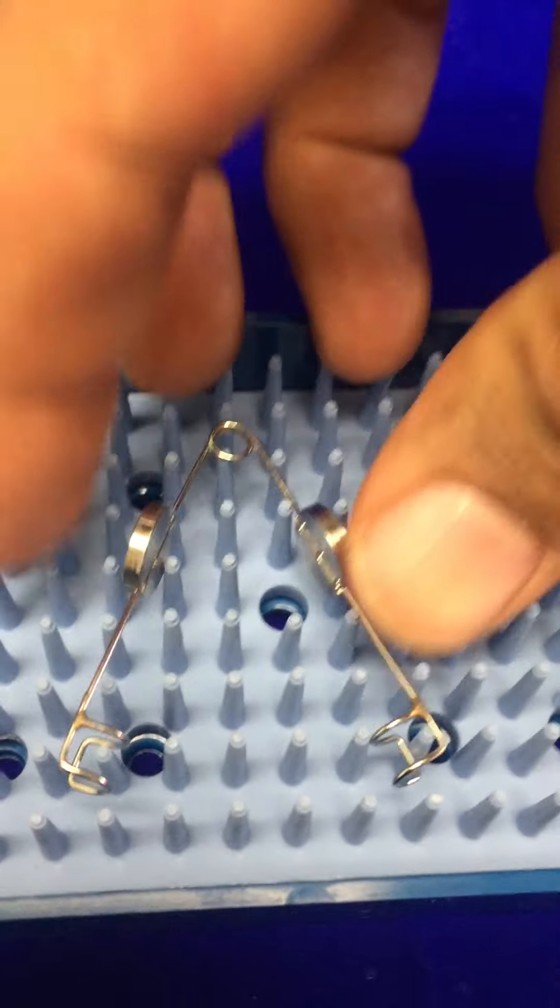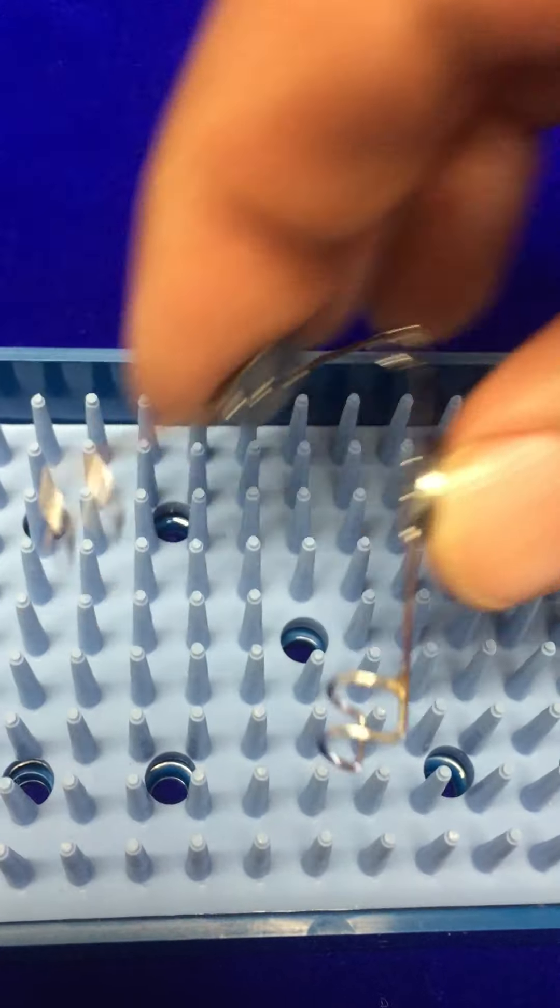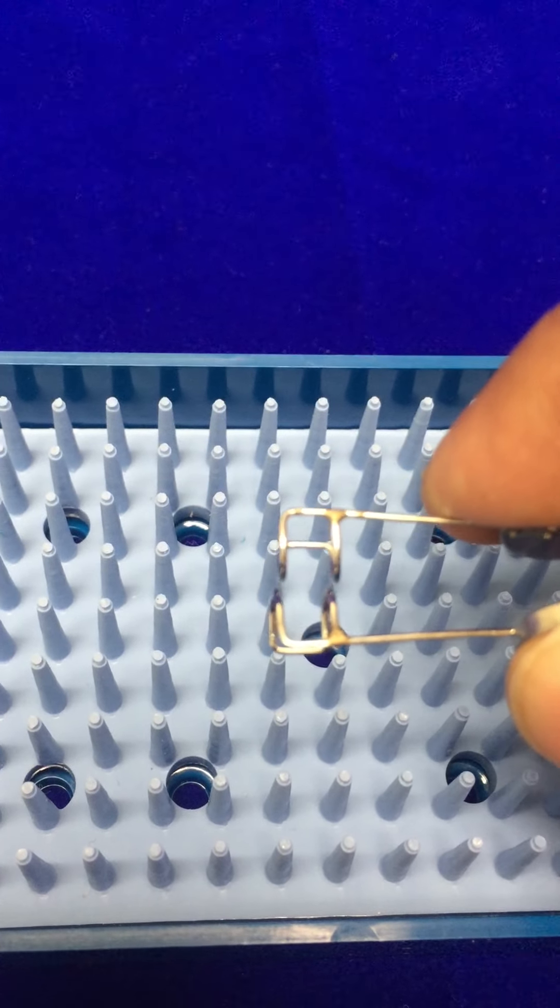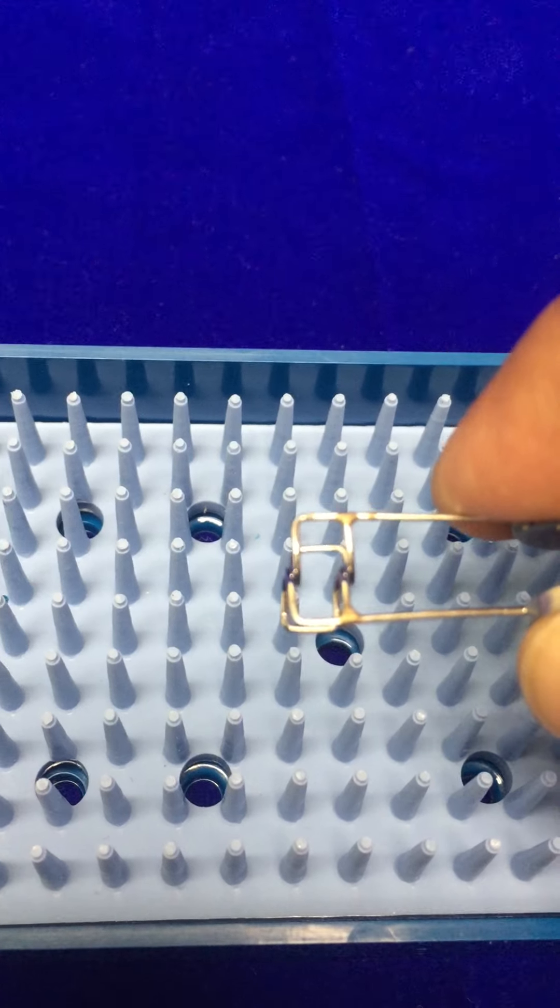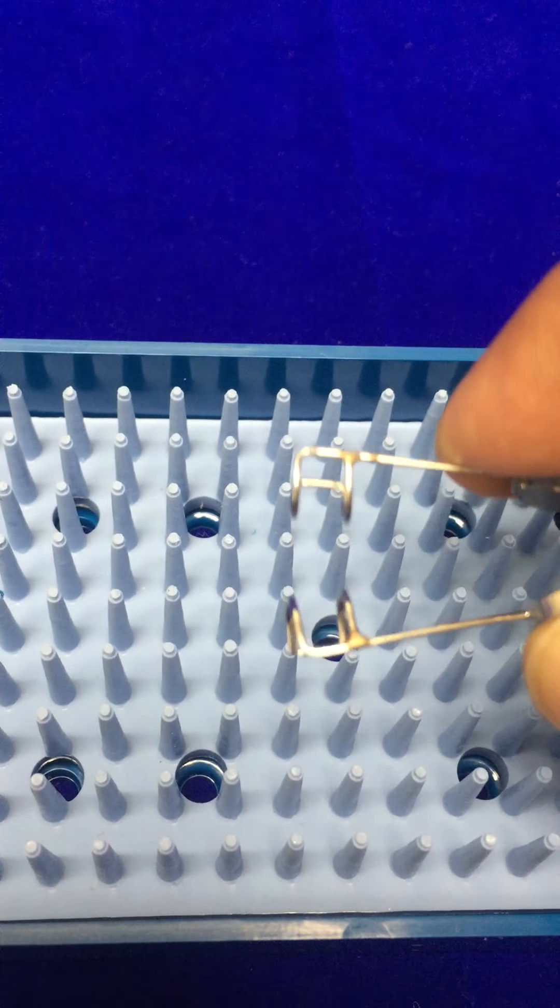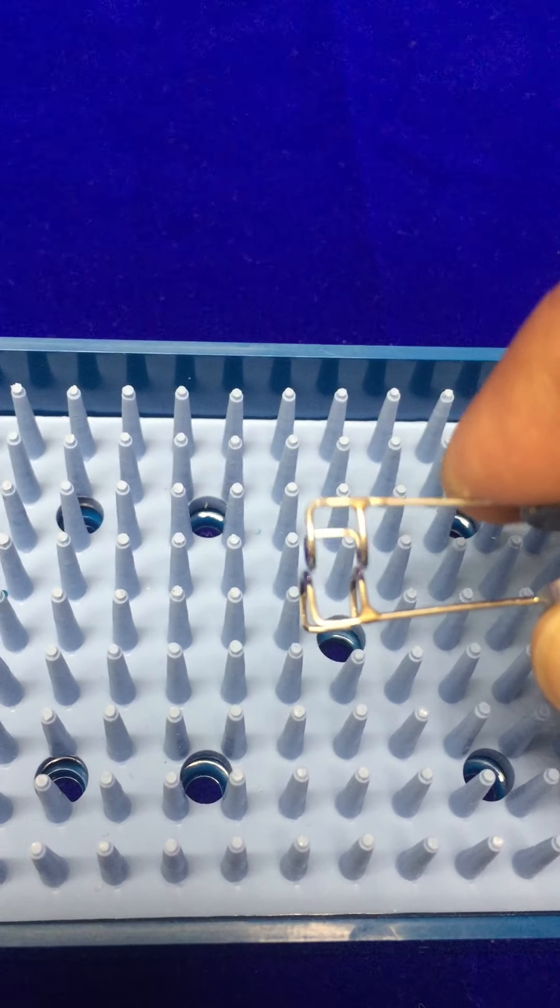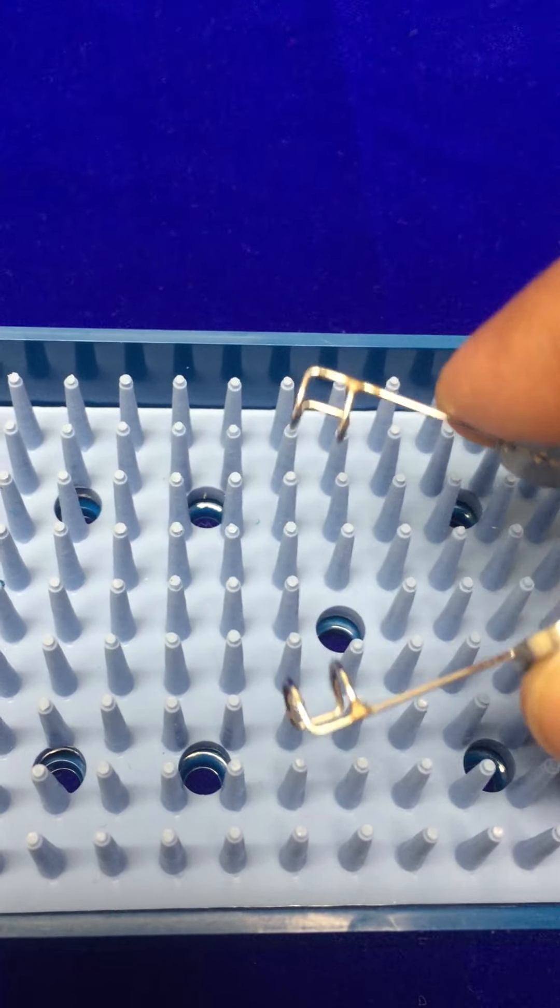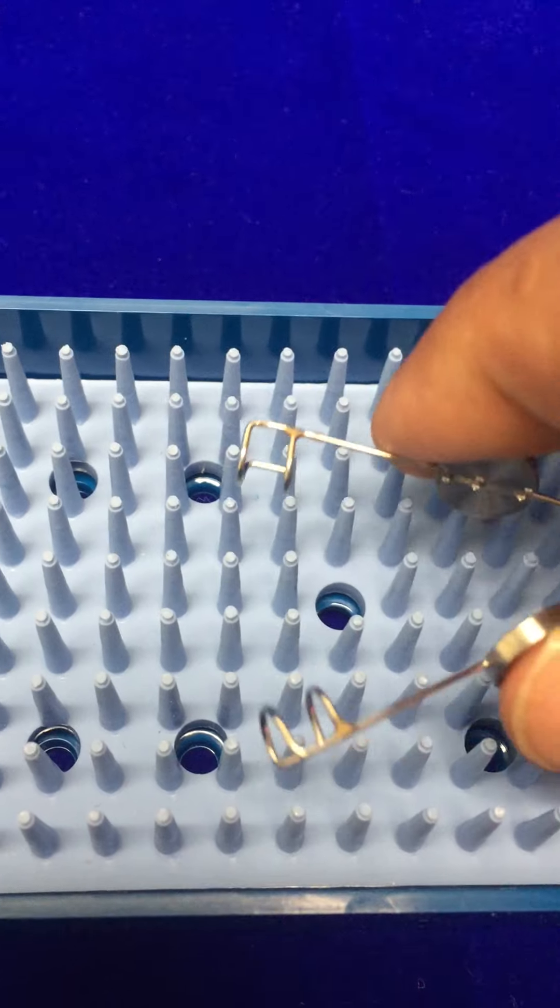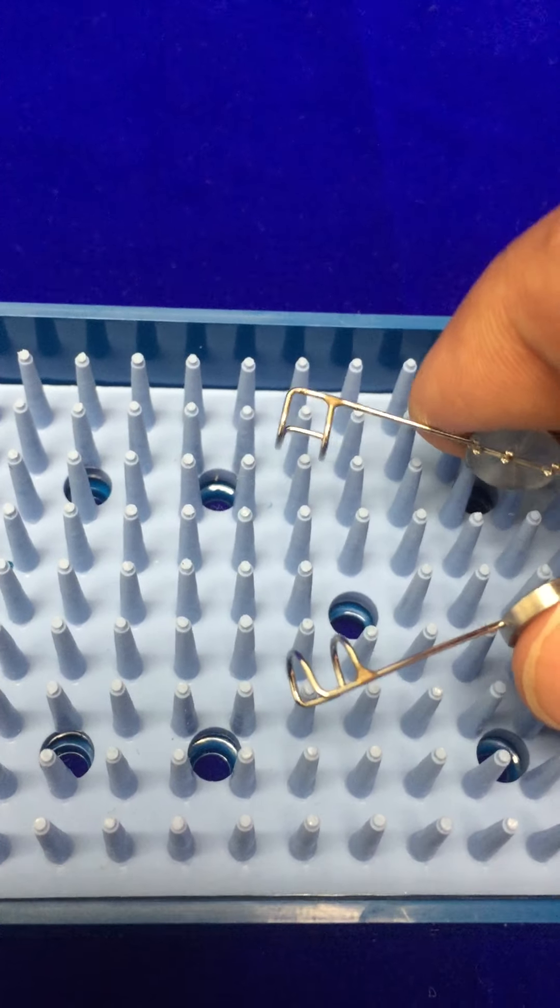And again, both the lids are of the same size. They go slightly inside, but pretty much both the lids are 5mm size.